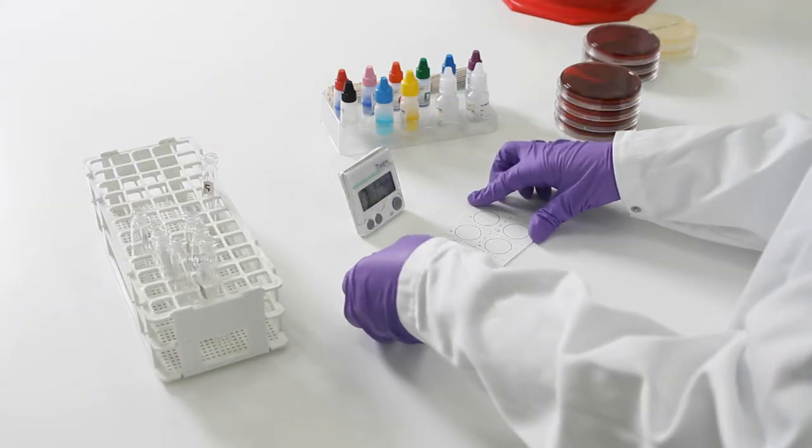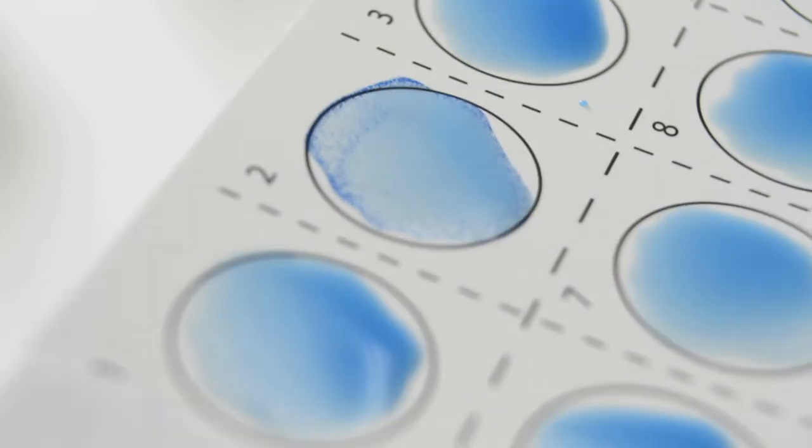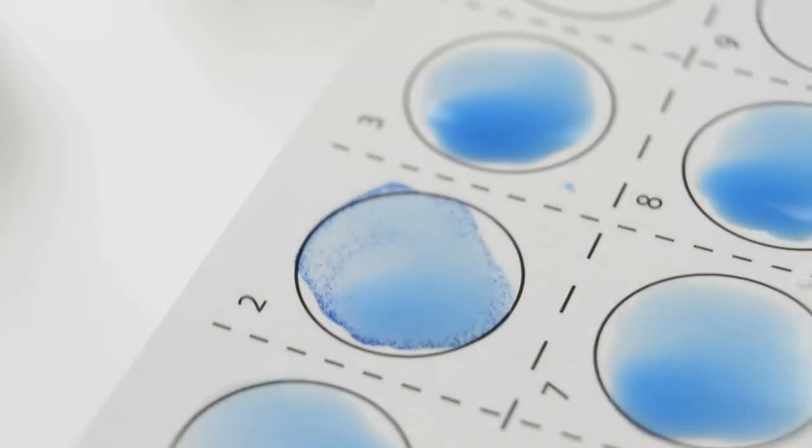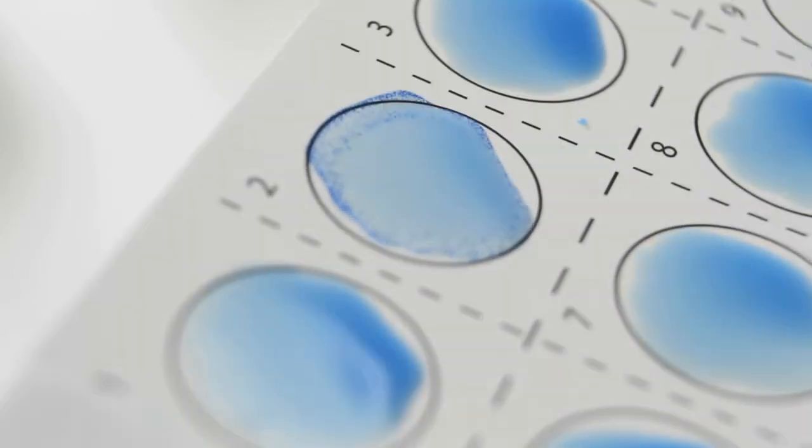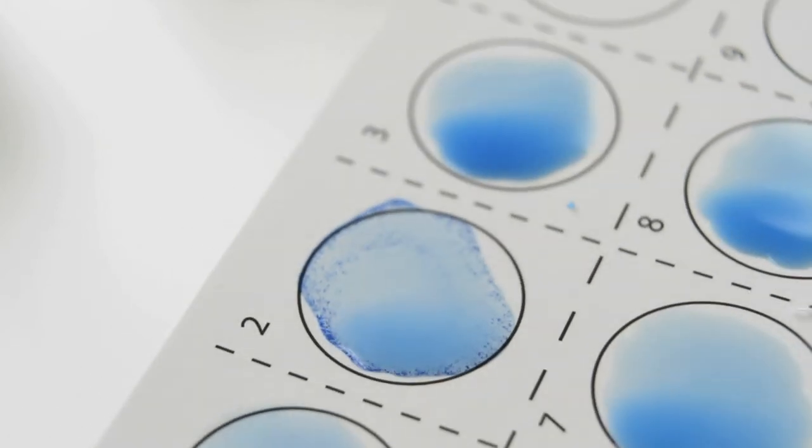Rock the card for up to 60 seconds and examine for agglutination. Notice how the blue latex and white background make reactions easy to read.